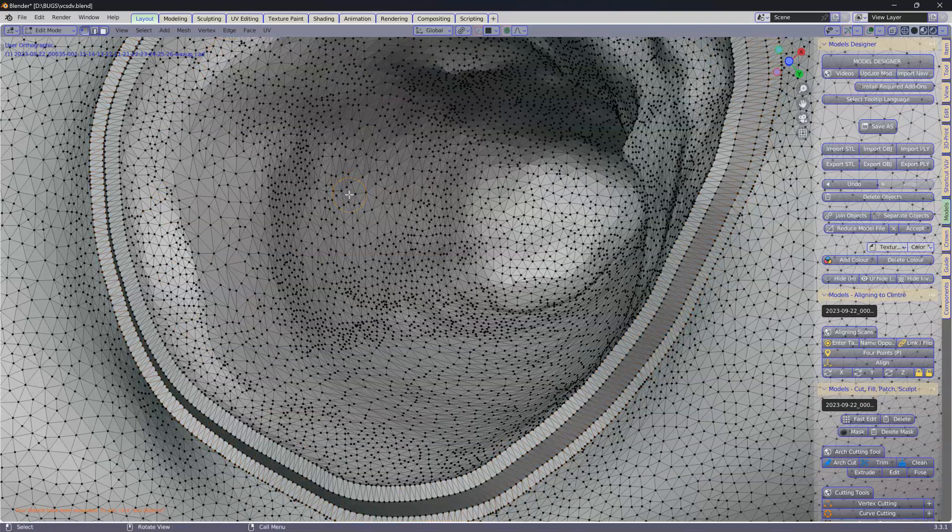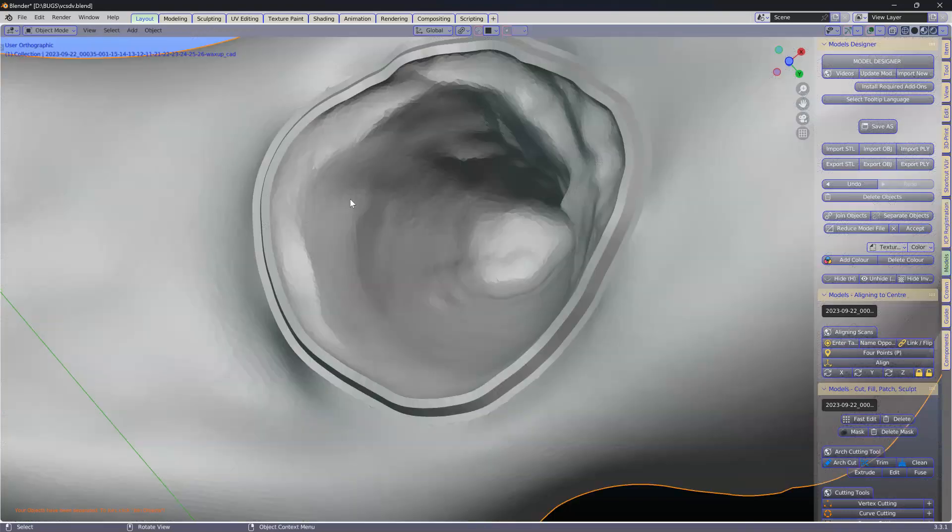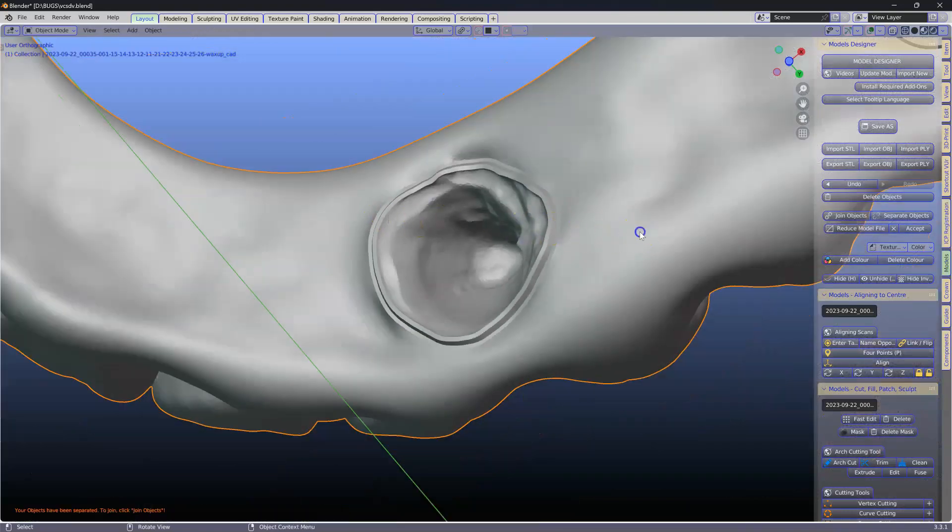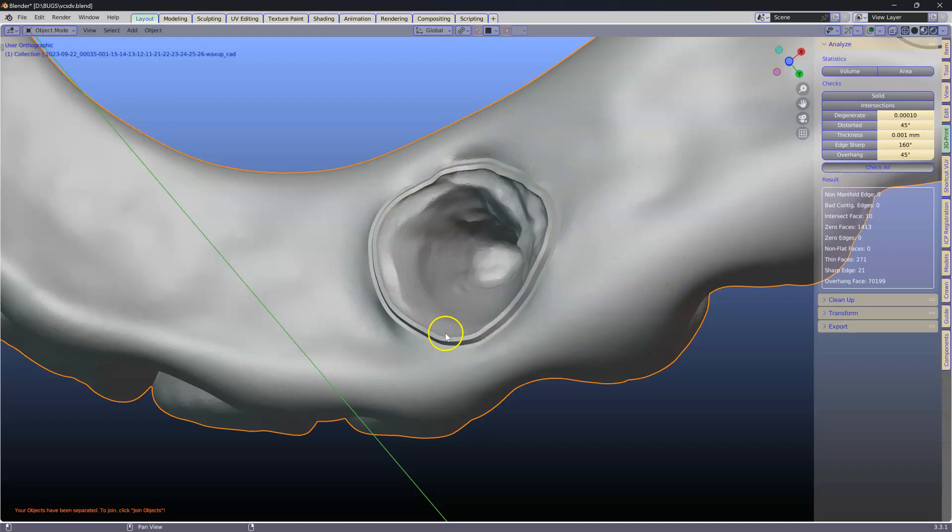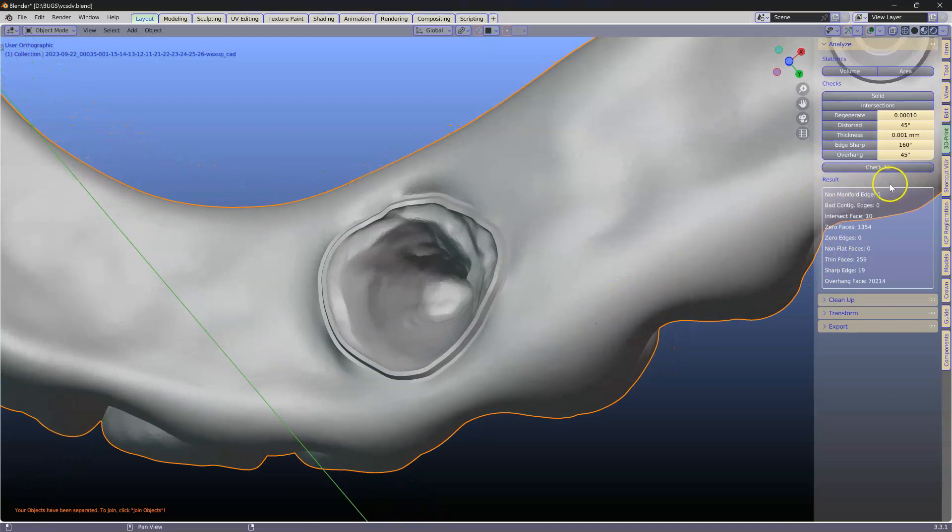Alt-A, get out of it. Tab. Let's run this through the 3D Print Toolbox and we're going to click on Check All. Let's just see that this is nicely merged. So the concern here is the non-manifold. There's none.